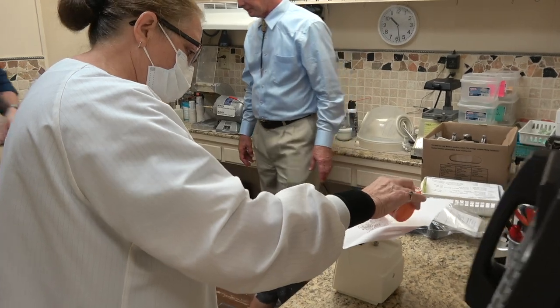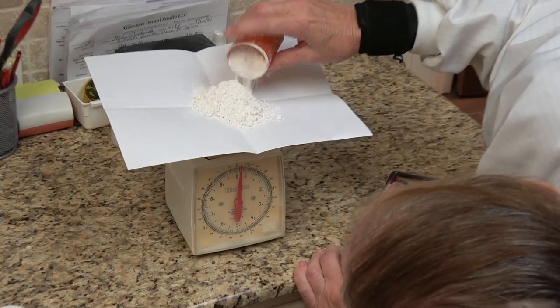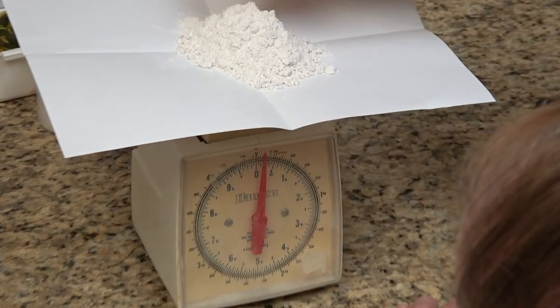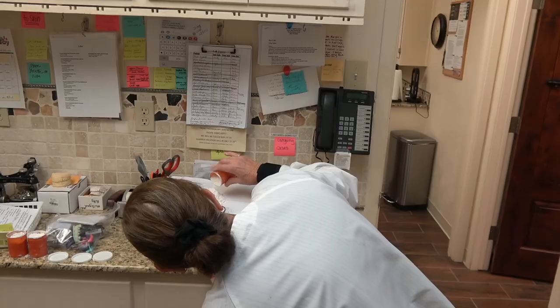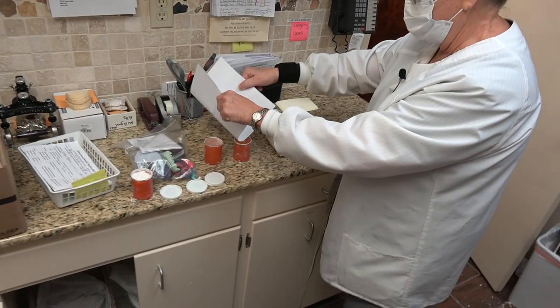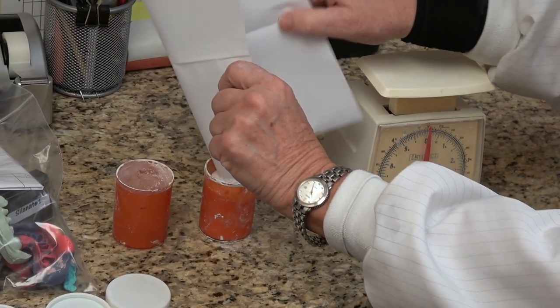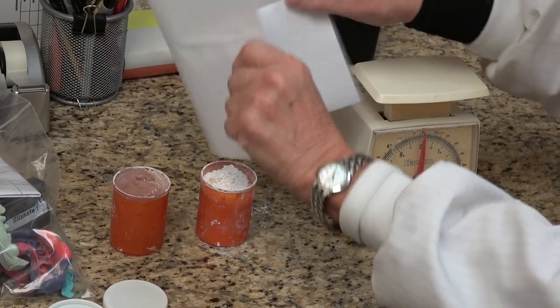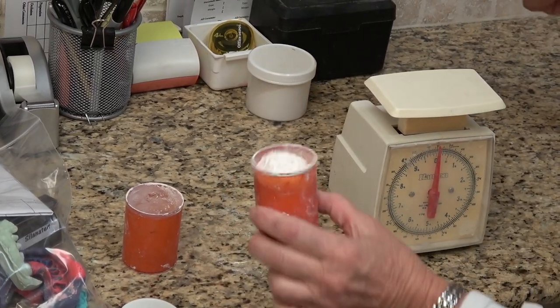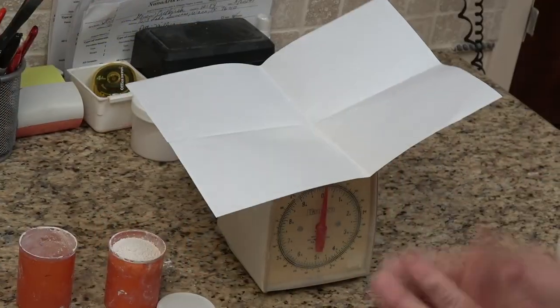We're measuring the stone and we need 100 grams of powder. These are the manufacturer's directions. I put them in little containers — you can get these from a drugstore, little medicine bottles from a pharmacy.